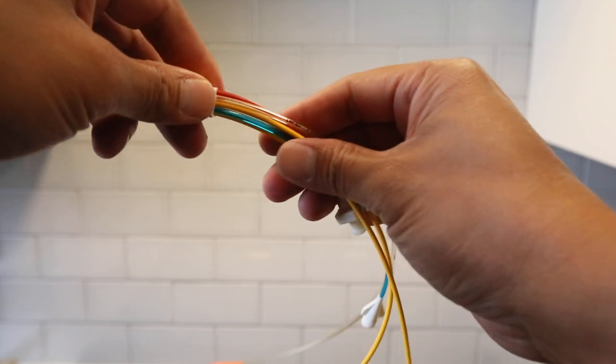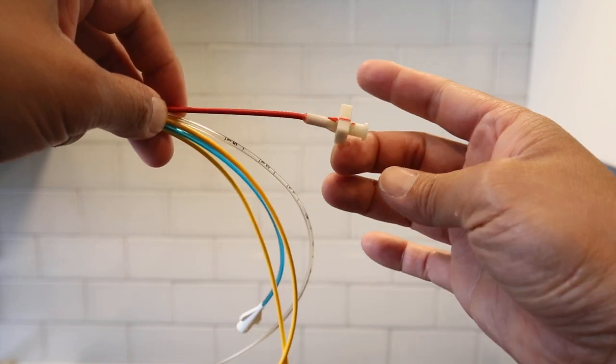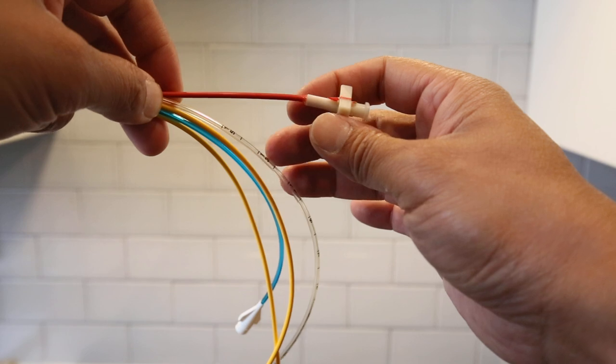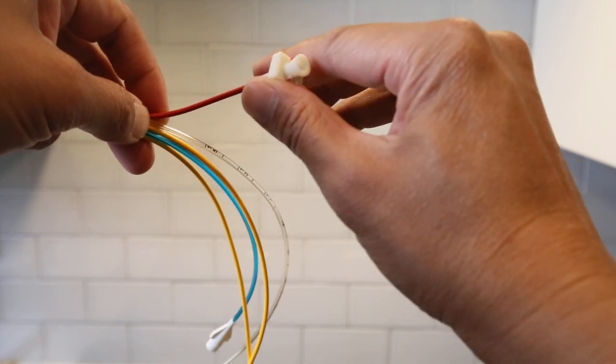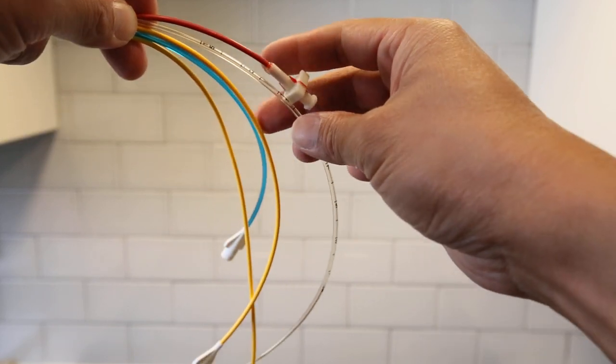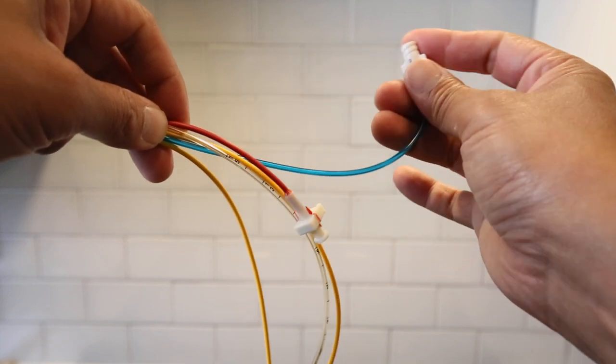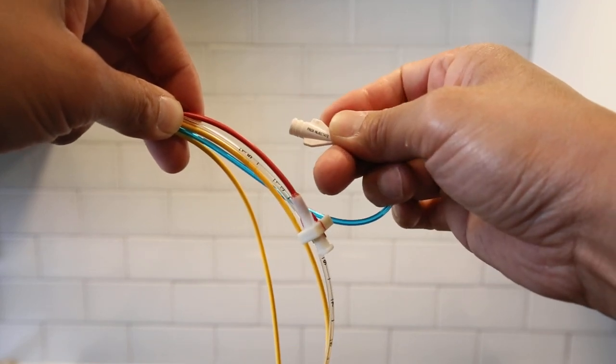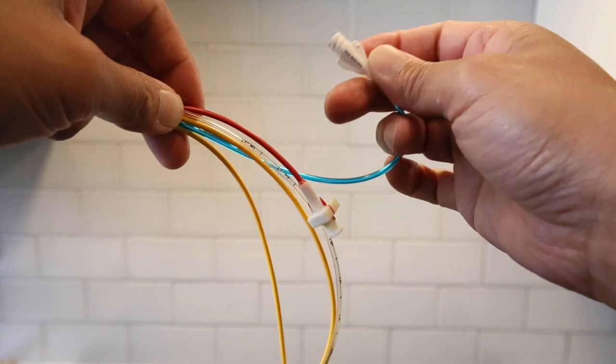Once again, you got your small one, shortest one for the injection syringe. Then you have your proximal.